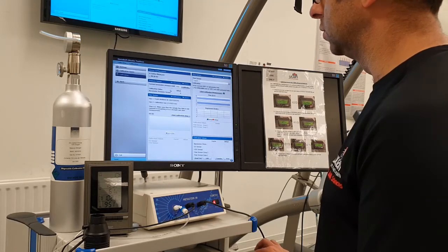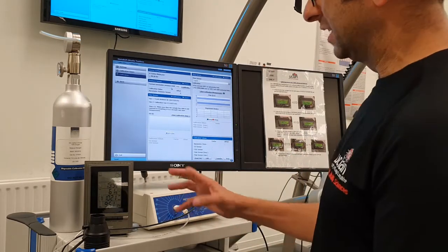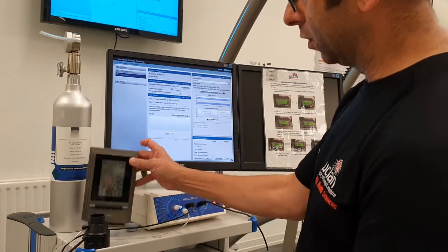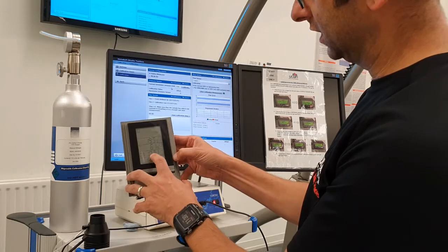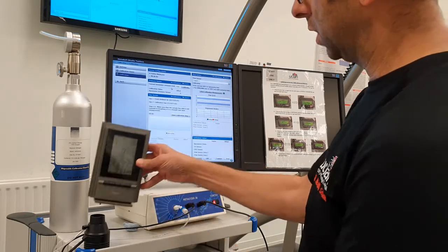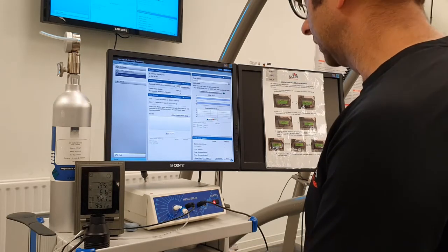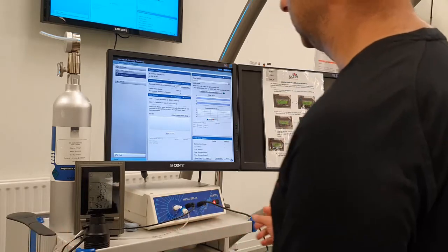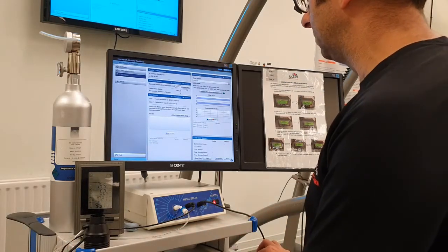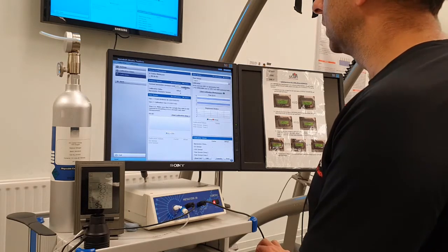The first thing we need to do is enter the barometric pressure within the lab, in millibars. We've got this little digital barometer — you can see it's 1021 millibars today. Enter that value; it will change every time you come into the lab depending on weather conditions, so always double check it. Then click on Calibrate.